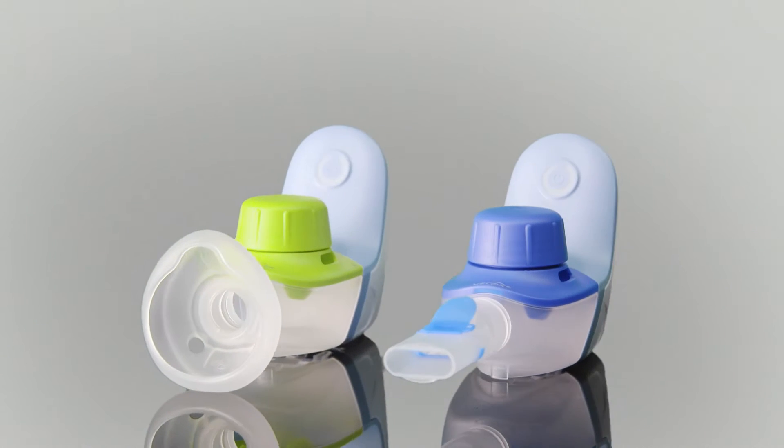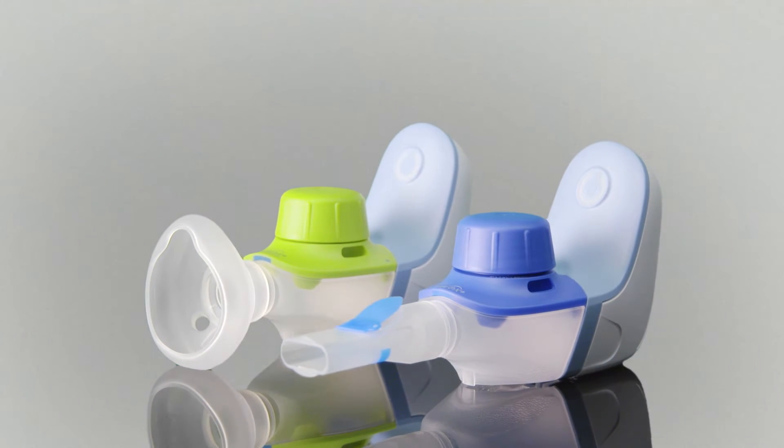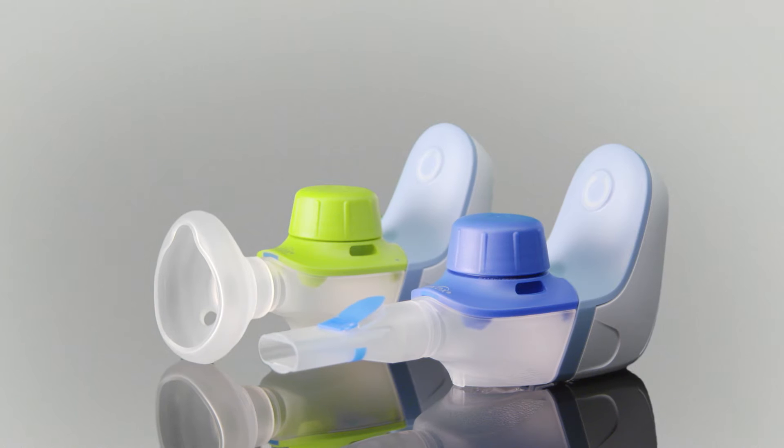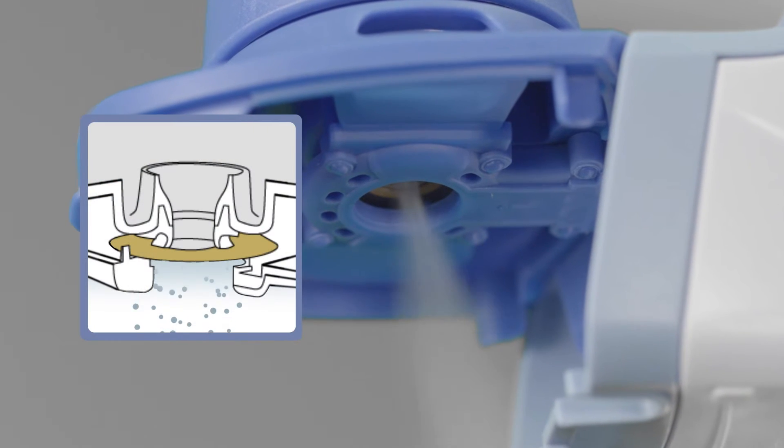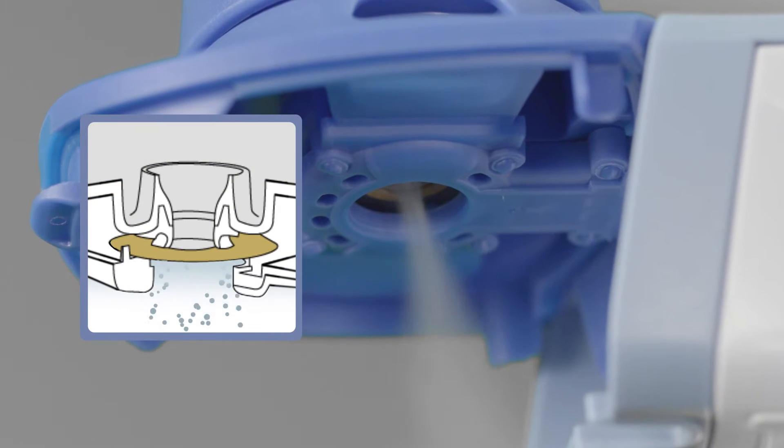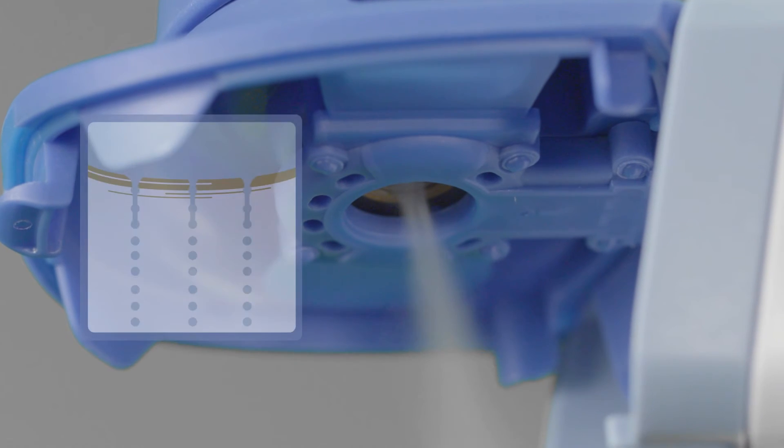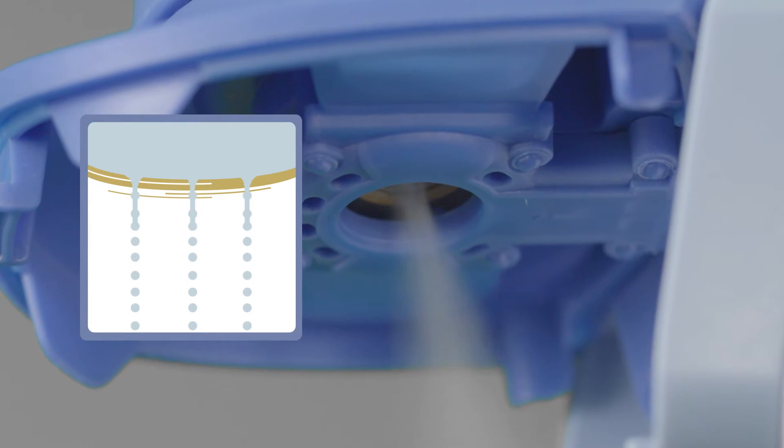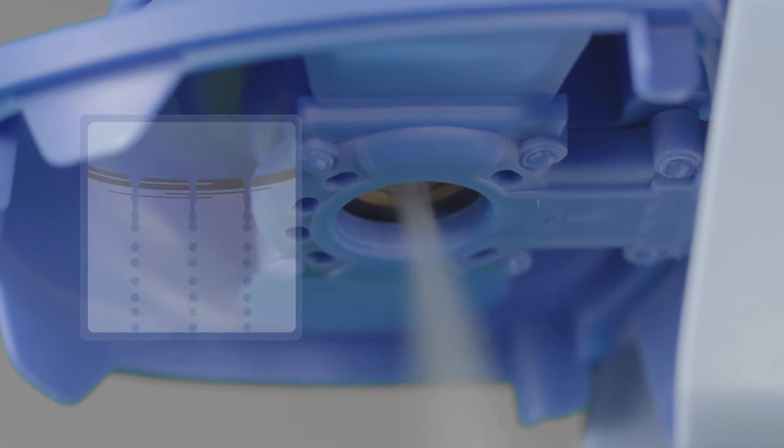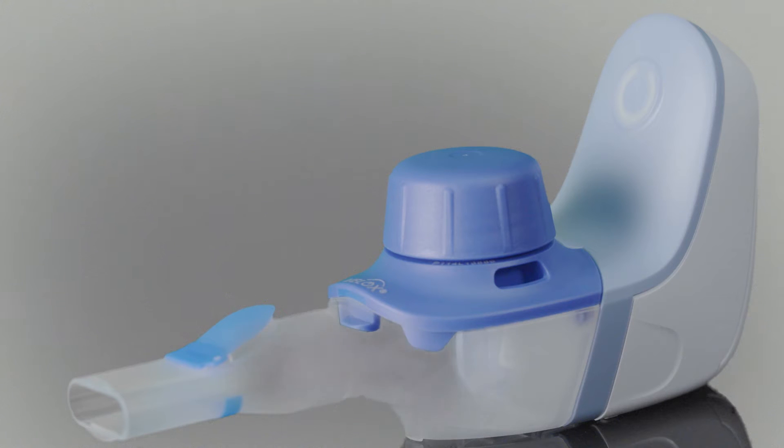Velox is an electronic nebulizer with vibrating mesh technology. The inhalation solution is pushed through the numerous pores in the membrane at a high frequency. The fine mist, the so-called aerosol, generated in this process is stored in the aerosol chamber before being inhaled via the mouthpiece.